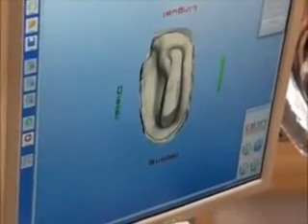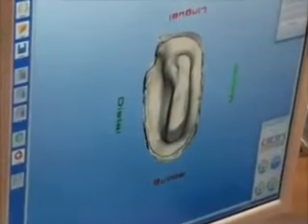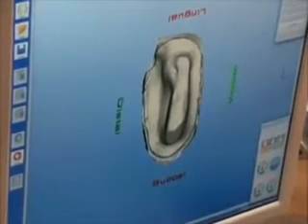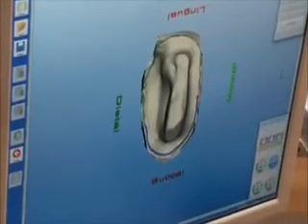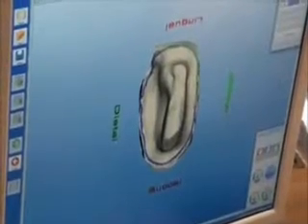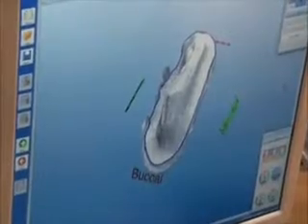This line is accurate to within 50 microns, or five hundredths of a millimeter. The edges are then checked and any corrections are made, as you can see in this case on the distal aspect of the prepared tooth.